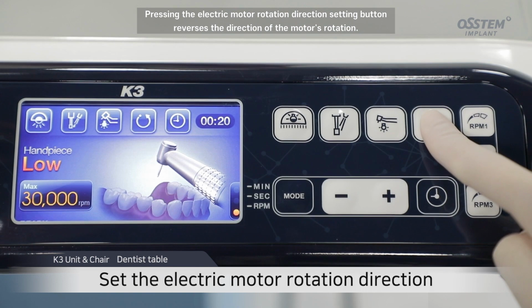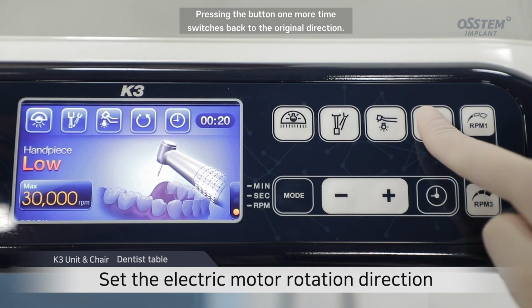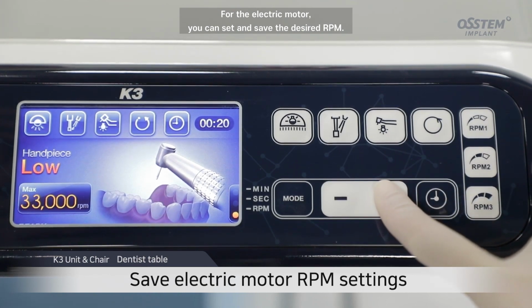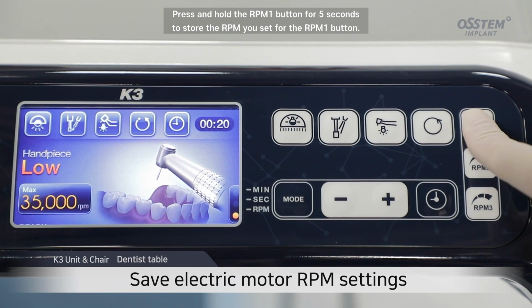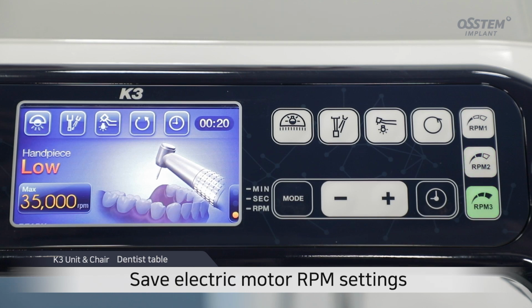Pressing the electric motor rotation direction setting button reverses the direction of the motor's rotation. Pressing the button one more time switches back to the original direction. For the electric motor, you can set and save the desired RPM. Press and hold the RPM 1 button for 5 seconds to store the RPM you set for the RPM 1 button. You can save for the RPM 2 and RPM 3 buttons in the same way.